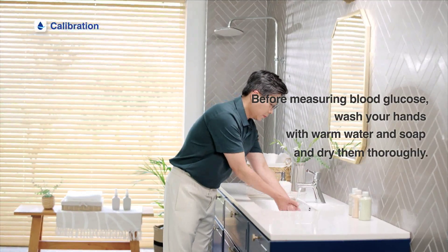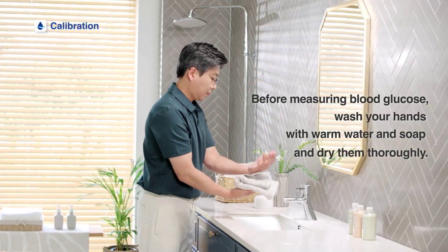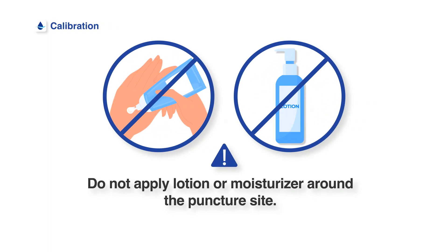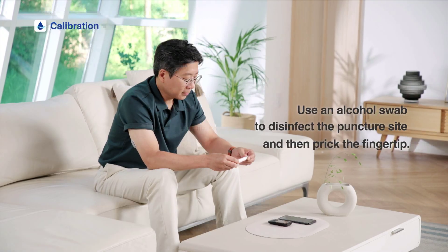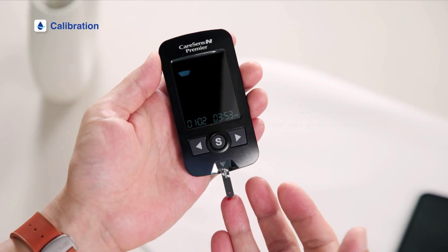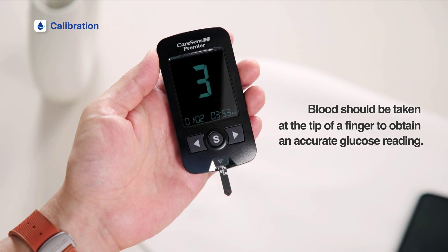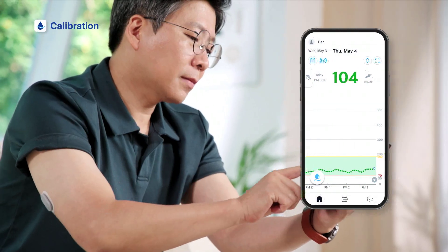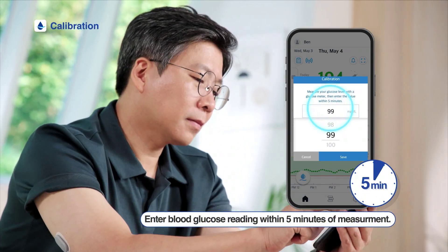Before measuring blood glucose, wash your hands with warm water and soap and dry them well. Do not apply lotion or moisturizer around the puncture site. Use an alcohol swab to disinfect the puncture site before pricking. Blood should be taken at the tip of a finger; otherwise, a glucose reading may not be precise. Enter the blood glucose reading measured within 5 minutes on the app.